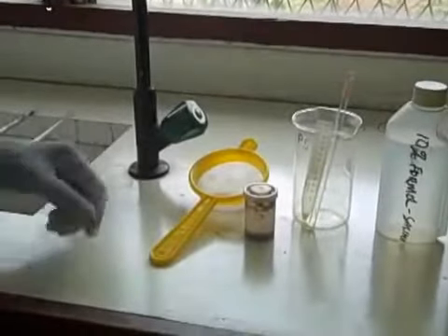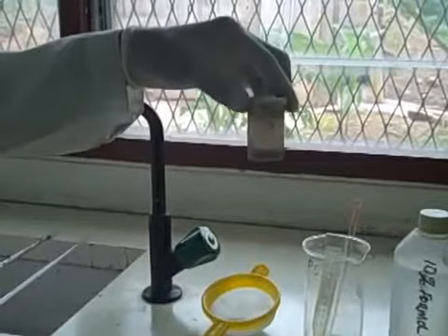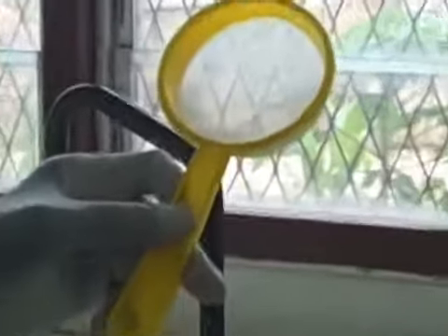These are the items we require in the stool concentration technique. We need the stool sample, the fine mesh of pore size 350 to 450 micrometer, the 15 ml centrifuge tube, a glass applicator for emulsifying the stool sample, that's the beaker for the filtrate, then 10% Formol saline for mixing the stool, then diethyl ether.